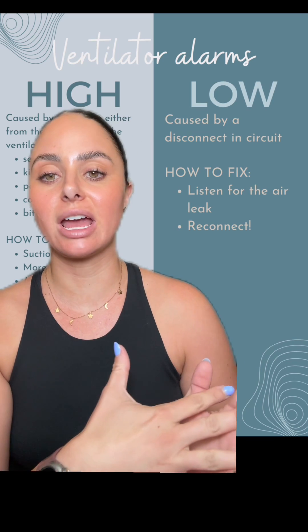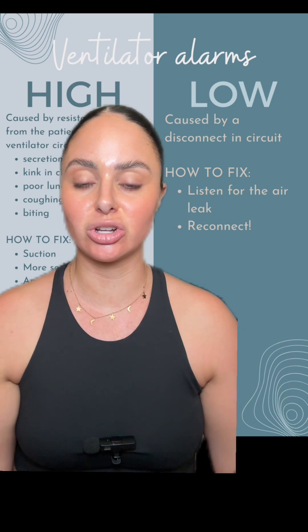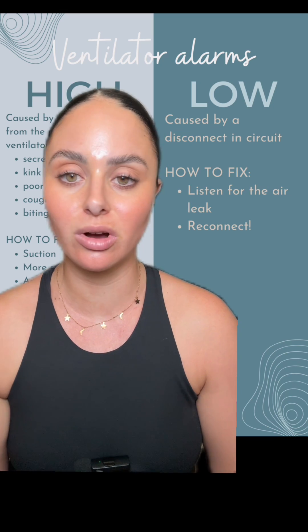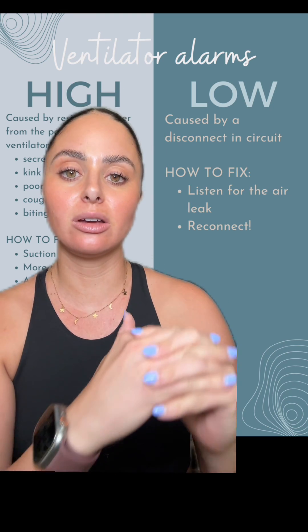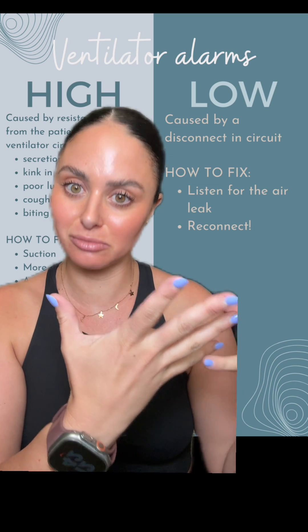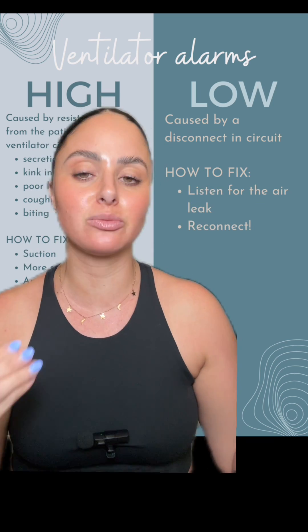Low pressure alarms, on the other hand, are caused by a disconnect in the circuit — that's pretty much the only thing that will cause a low pressure alarm. All you have to do is find where the leak is and reconnect it.